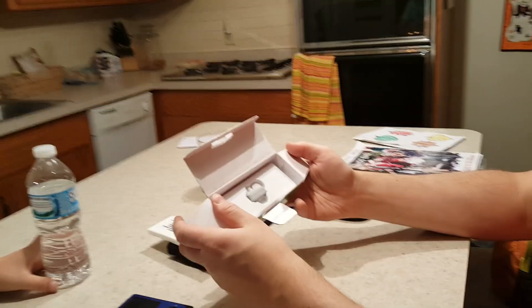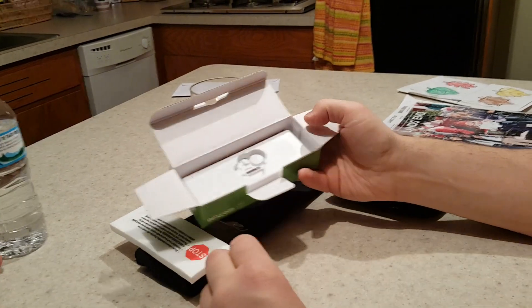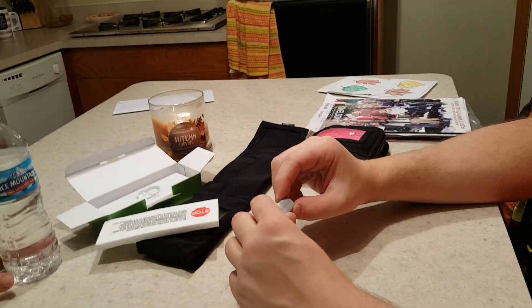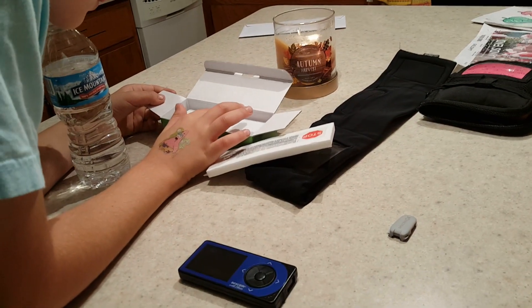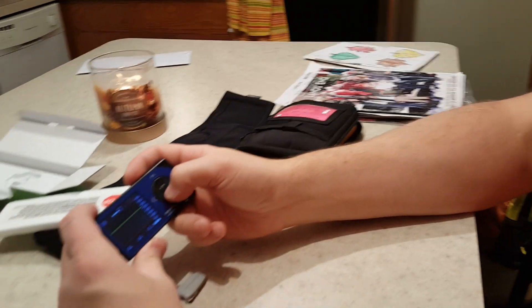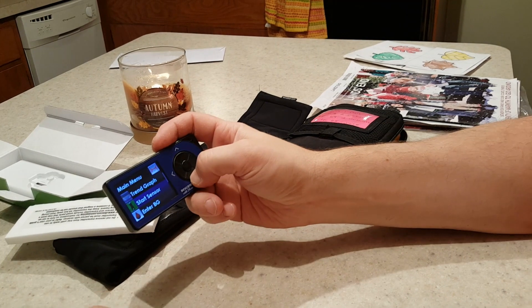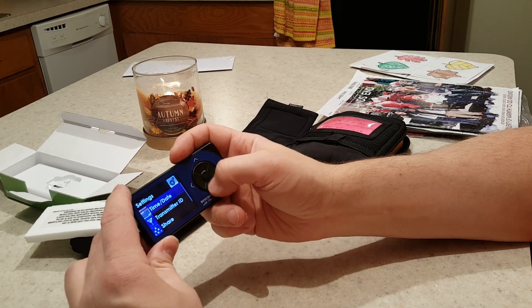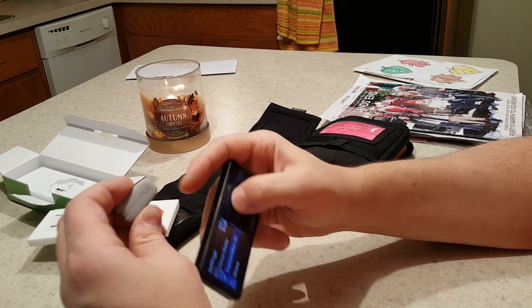That's probably what triggers the battery to start, or something. So we stuck with the G4 because it lasted a lot longer than the G5 — this one lasted over a year, our first one lasted 18 months. Now we have to take this one off. In the settings you would go to transmitter ID and enter the ID that's on the back of this.